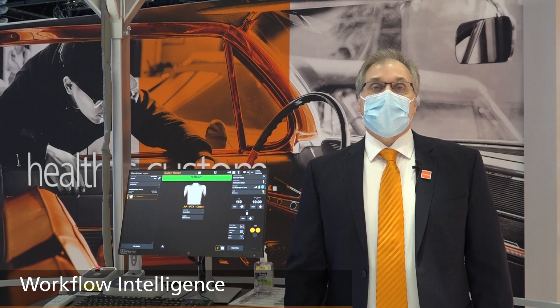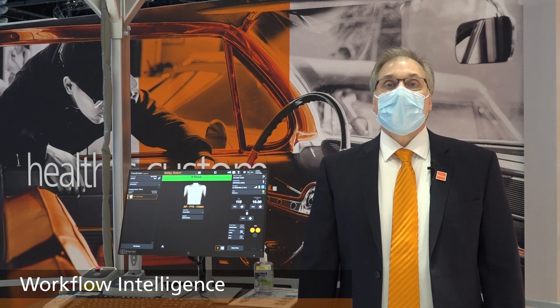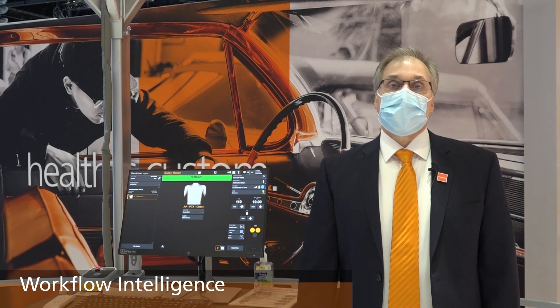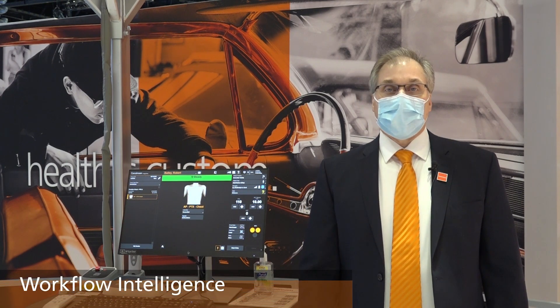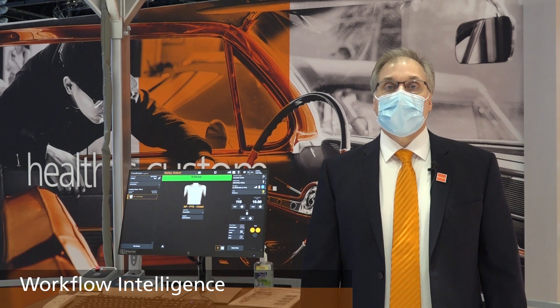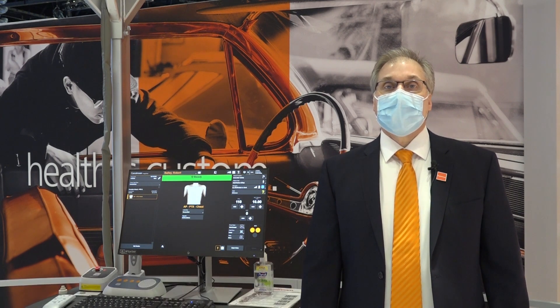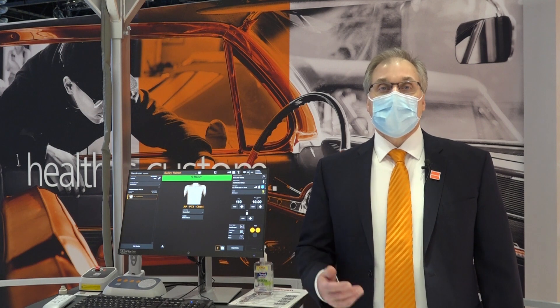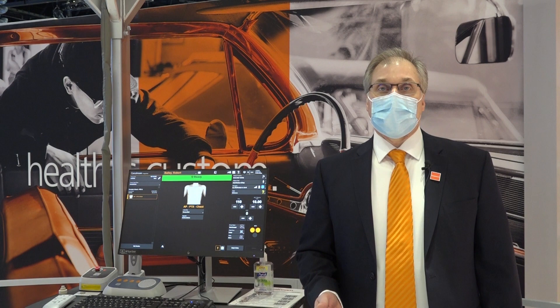Workflow intelligence delivers features that automate manual tasks and assist the radiographer during the acquisition and review process to optimize workflow, improve image consistency, reduce retakes, and provide better patient care.